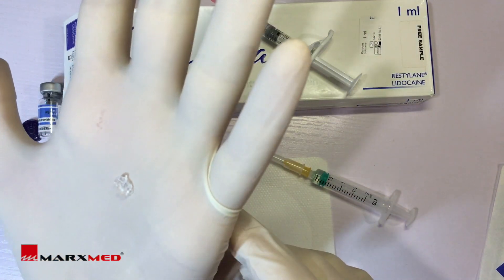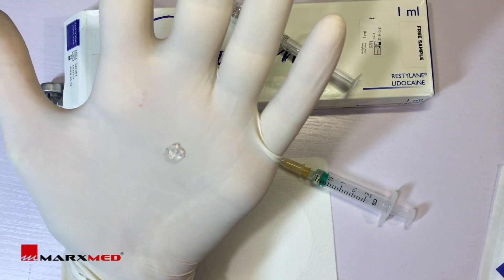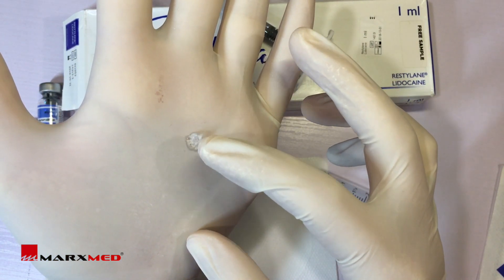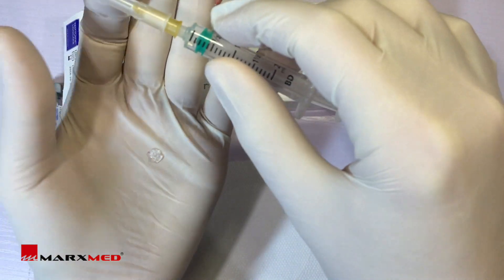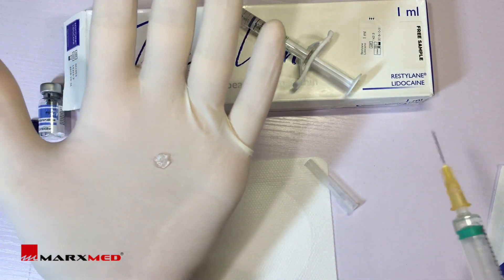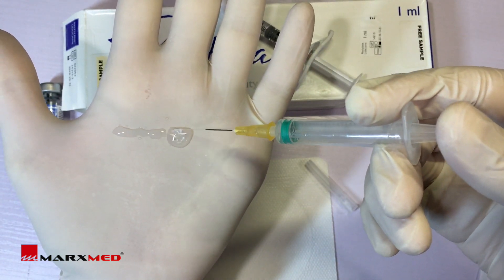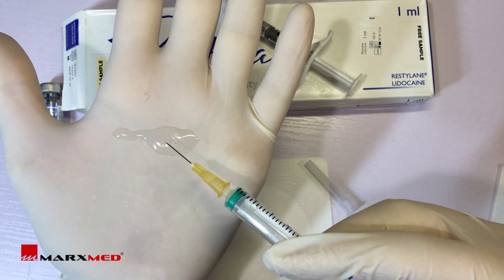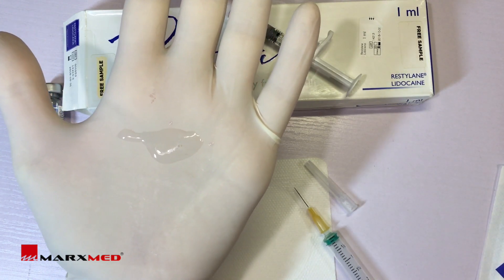So here is our sample of hyaluronic acid from Restylane. We'll inject it with a few drops of hyaluronidase. And here, we see how it instantly turns the filler into a liquid form.